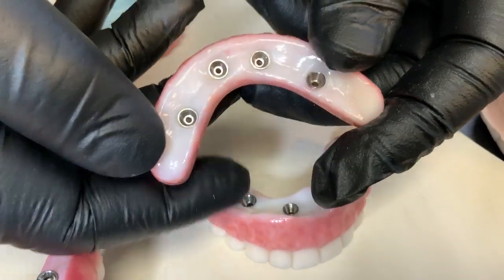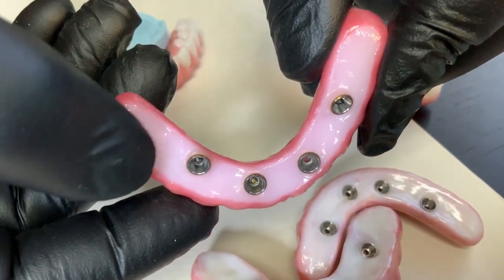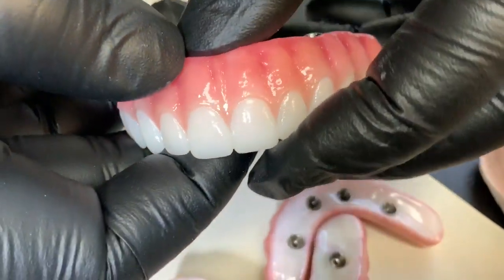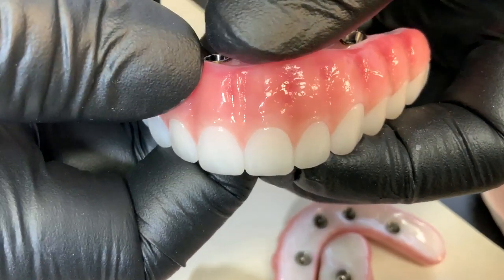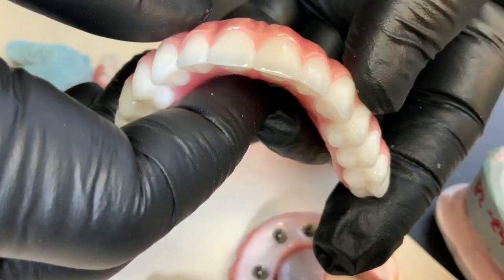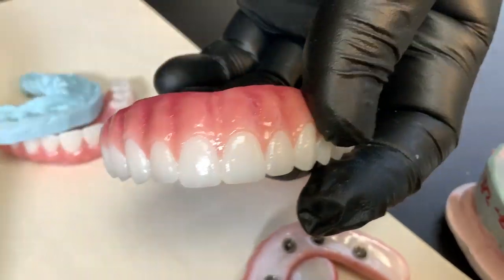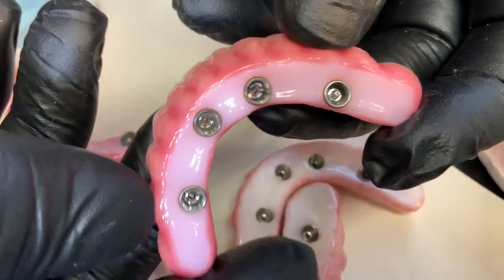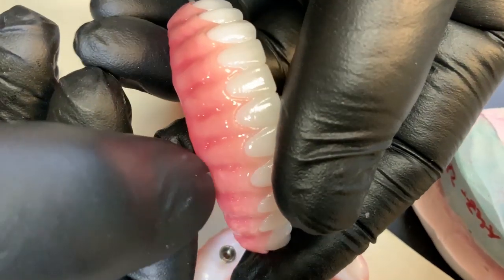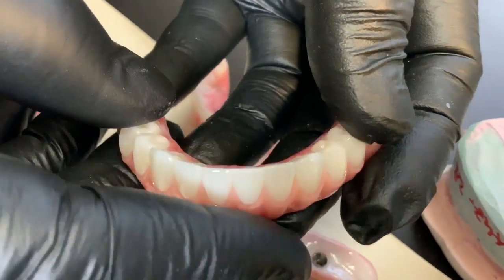Here's the lower right. What we did was try to narrow it down and make it as clean as possible, even though here is a long span. We made a great color and contour, with a nice smooth — same thing monolithic here — but just subtle porcelain outside, very little. Same thing on the lower: we cleaned it, certain areas we have to protect. When they're smiling we have to show them, so this is the final aesthetics.